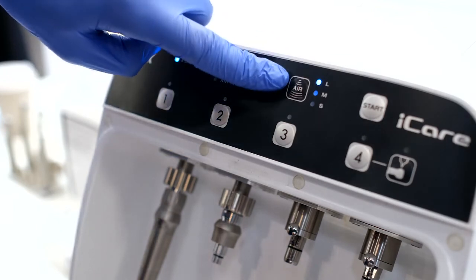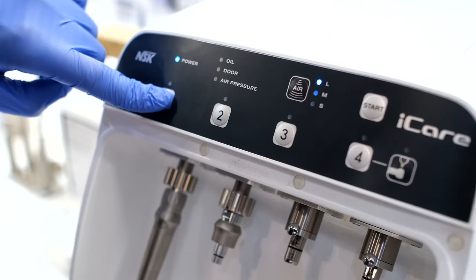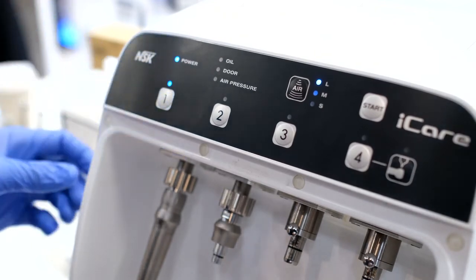To purge extra air through a handpiece after you have run a cycle, press the air button and the selected port at the same time to purge the air.